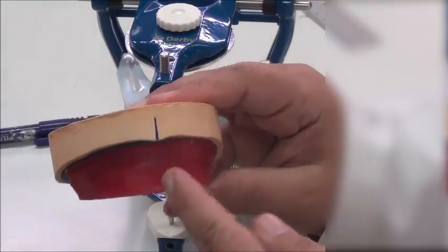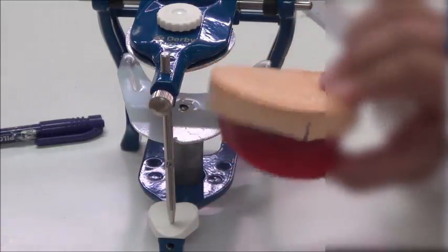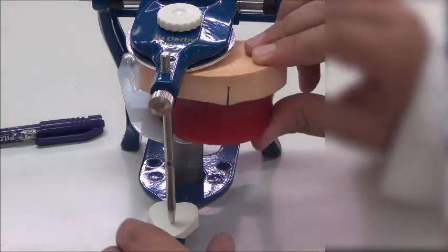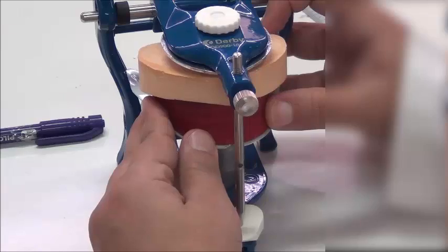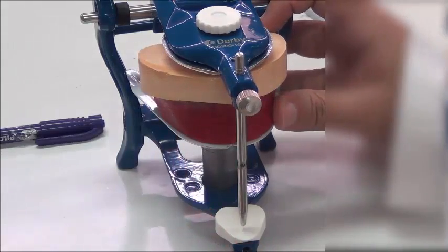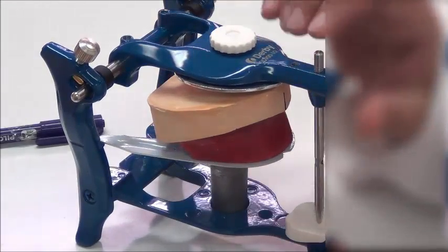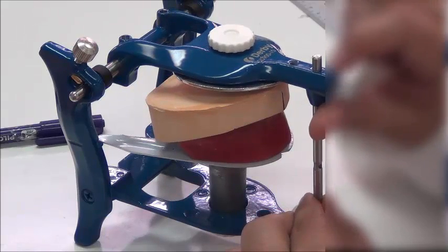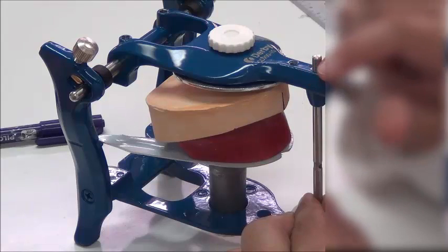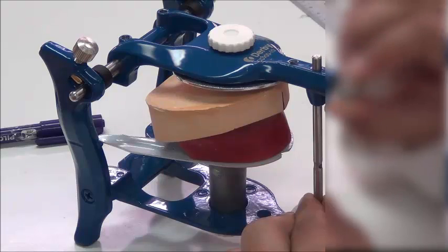Now that I have the anterior lines and the two posterior lines ready, I'm ready to put this cast on the articulator after I have checked all of the measurements of my wax rim. So I'm going to place it first in the articulator. For the case we have, which is the case of Abu Mahmoud that we talked about, we're going to raise the pin slightly to have some space for the mounting. So we're going to put the upper member of this articulator that you have identified from the previous video, going to put it on the upper slot of the incisal pin.